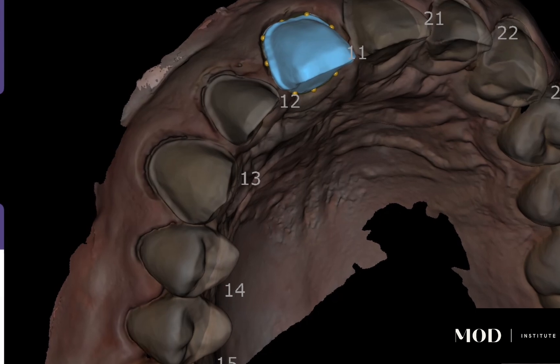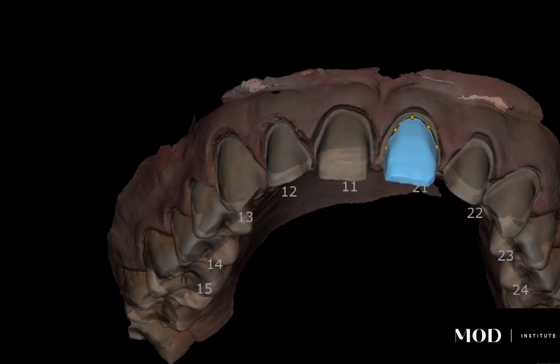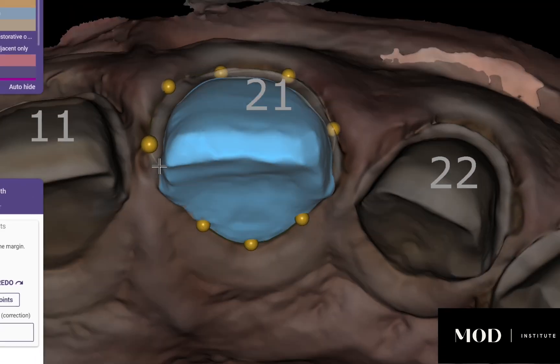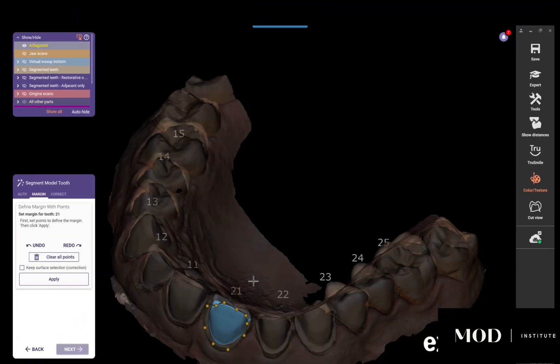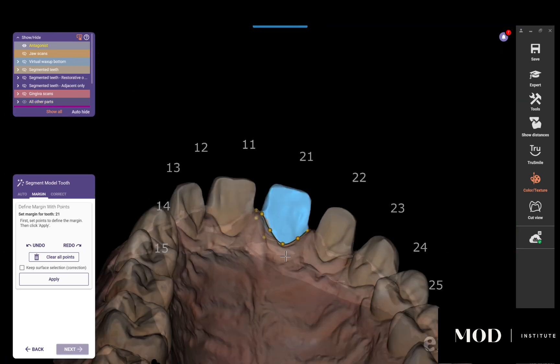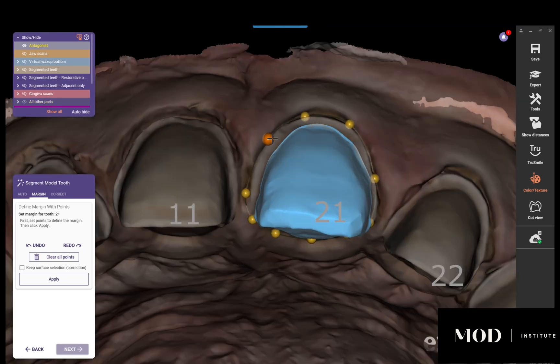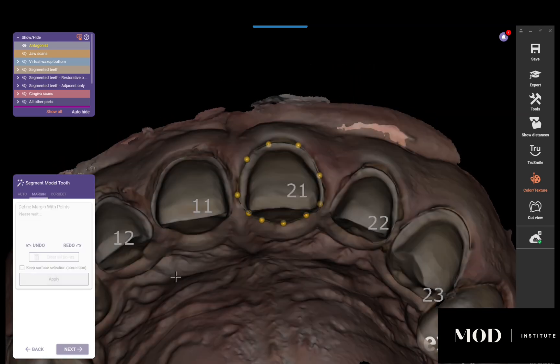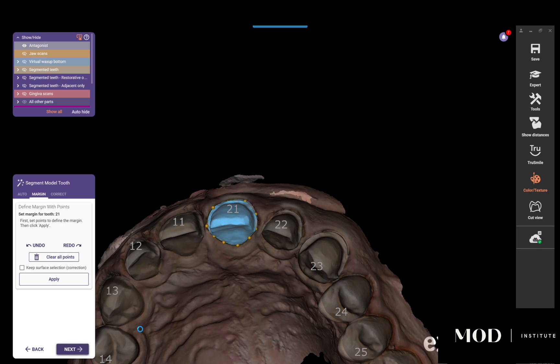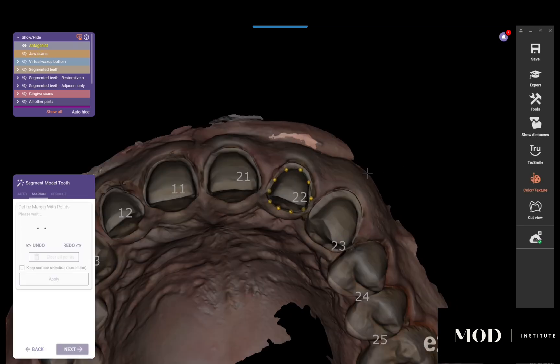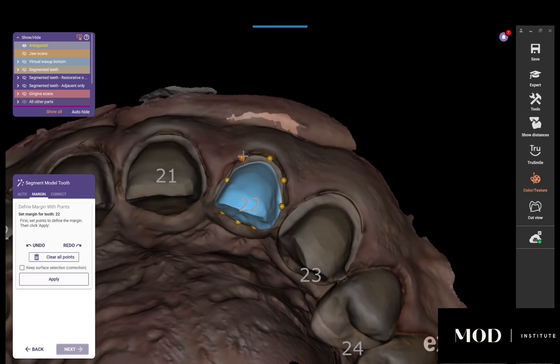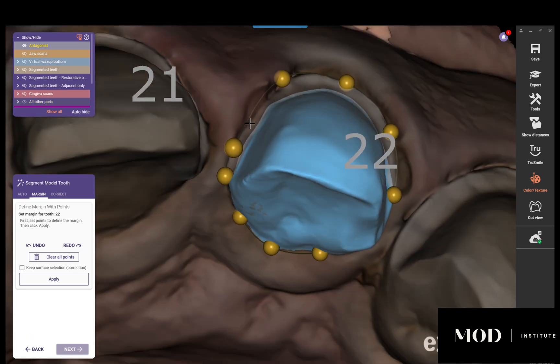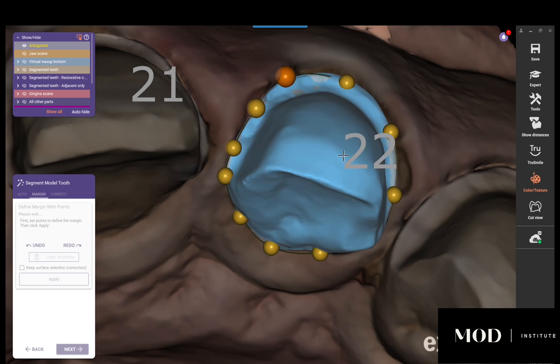There are some teeth I need to tweak ever so slightly. For example, tooth number eight — I want to extend the segmentation line past the margin so that the detachable die includes the margin and a little material apical to it. I'm clicking those edit balls and dragging them into the retracted sulcus. I'll do the same for tooth number ten. If you need to add another control point, just click the line.